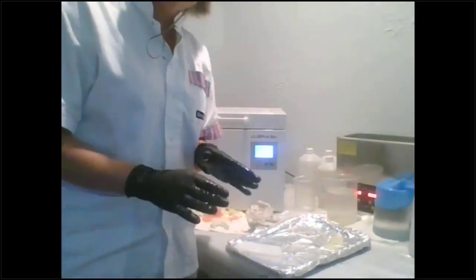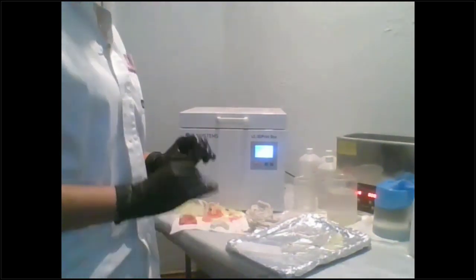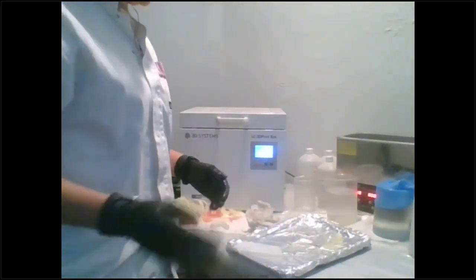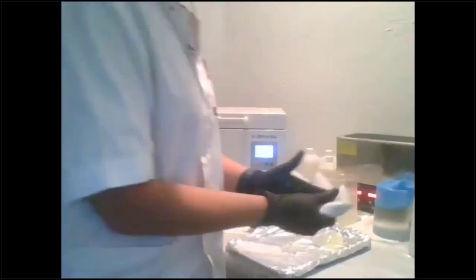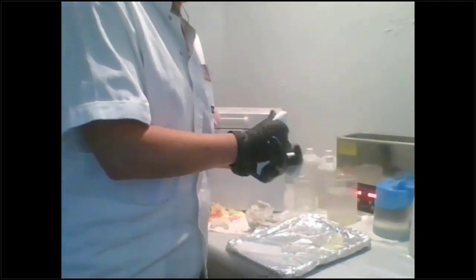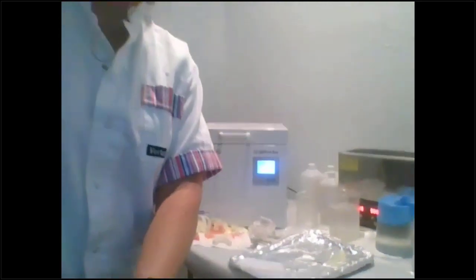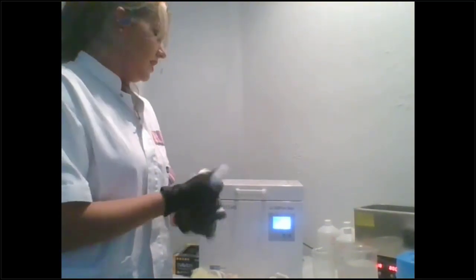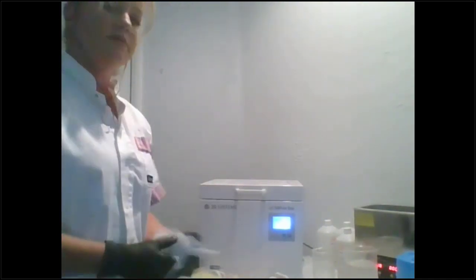And if you already use NextDent surgical guide or any other surgical guide, if you do not get that IPA dry and completely evaporated, you will have microfractures. Okay, so make sure no matter what kind of printer you're using or what kind of material, that your IPA is fully evaporated before you post cure it, because you're going to boil it, if it's a heat cure oven. So just use an air hose and dry it. Put your sleeves in. Put it in here for 10 minutes.